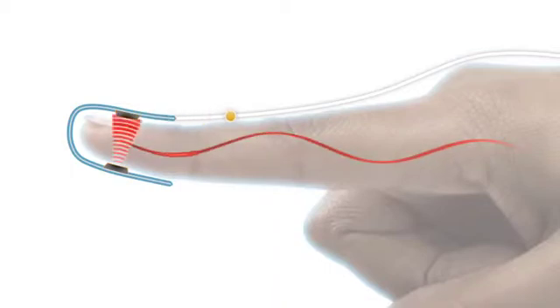Nonin sensors have an emitter that projects a tuned light pattern through the arterial blood and a detector which receives that light. Changes in the light spectrum during pulsation of blood generate a measure of blood oxygenation and pulse rate, which is sent to the pulse oximeter.